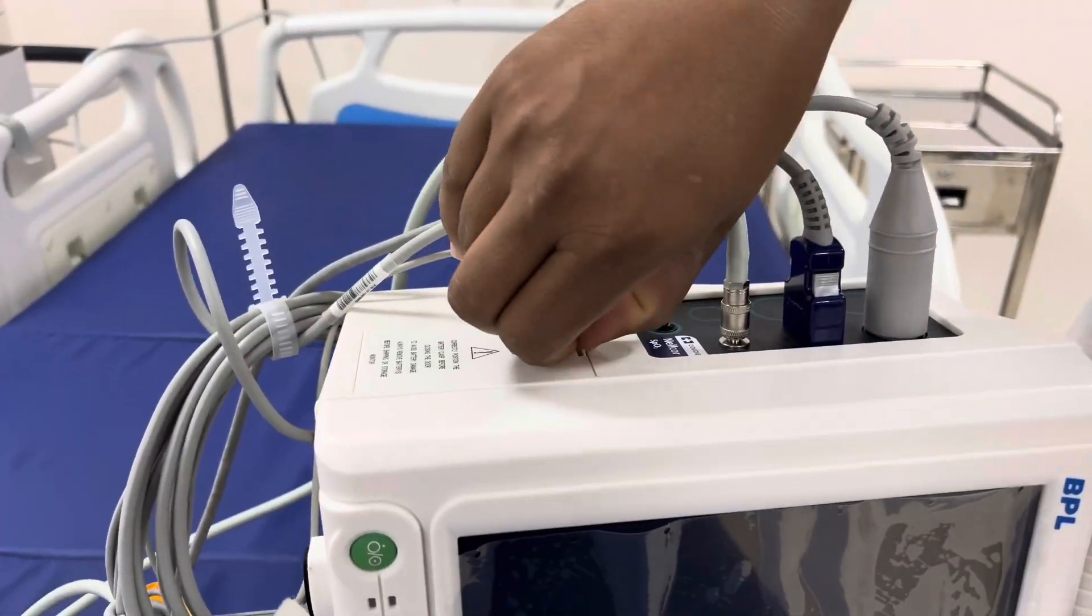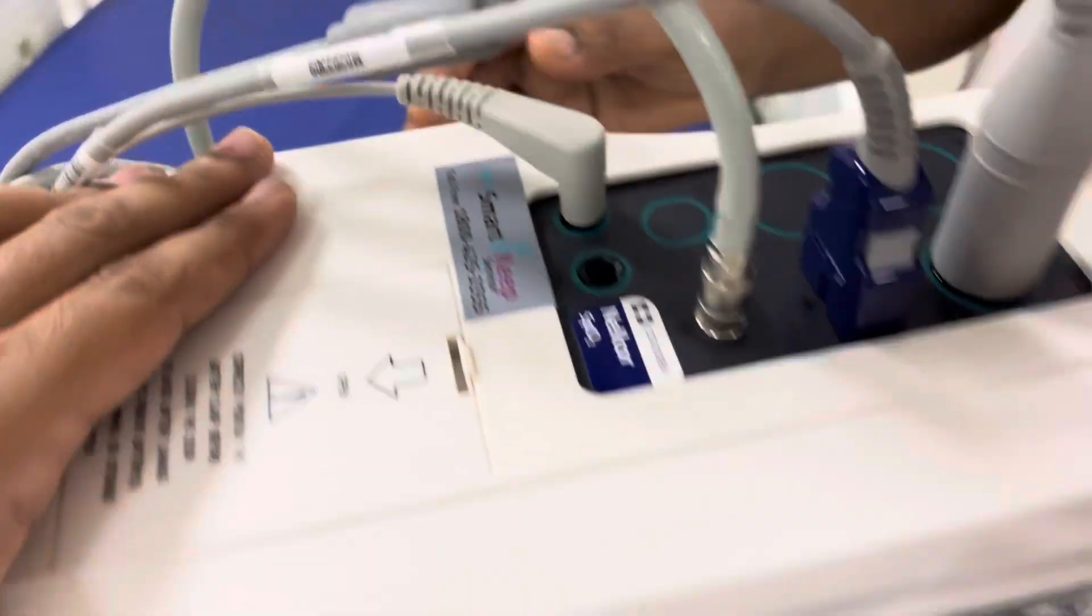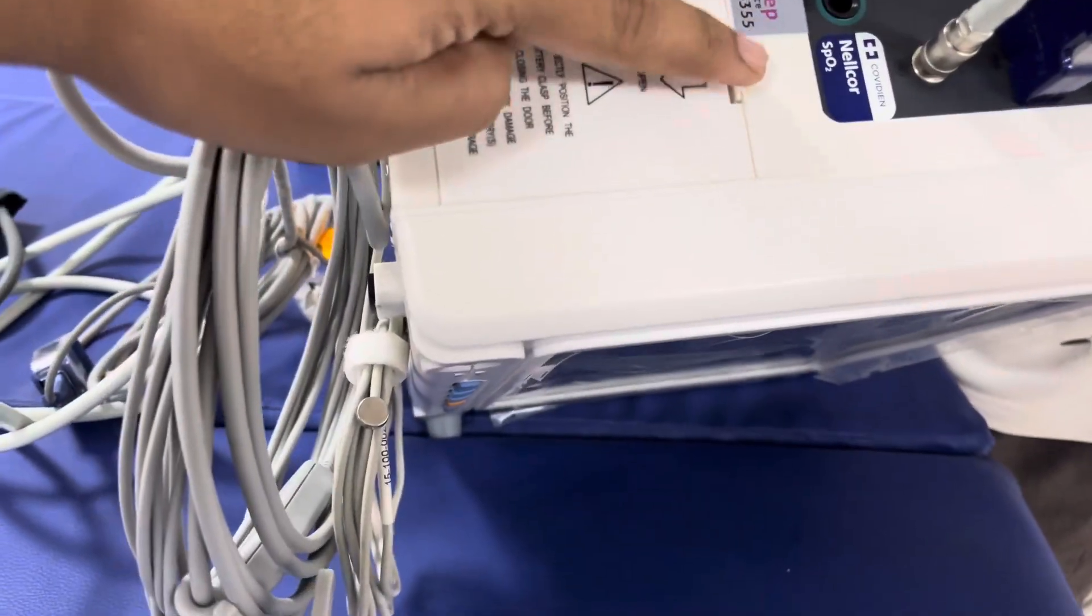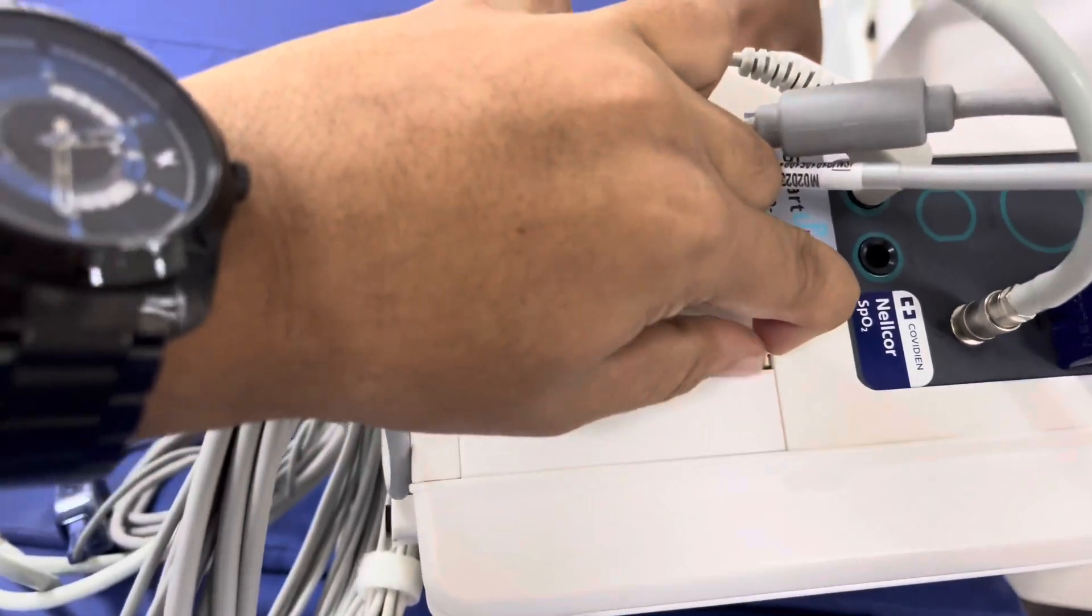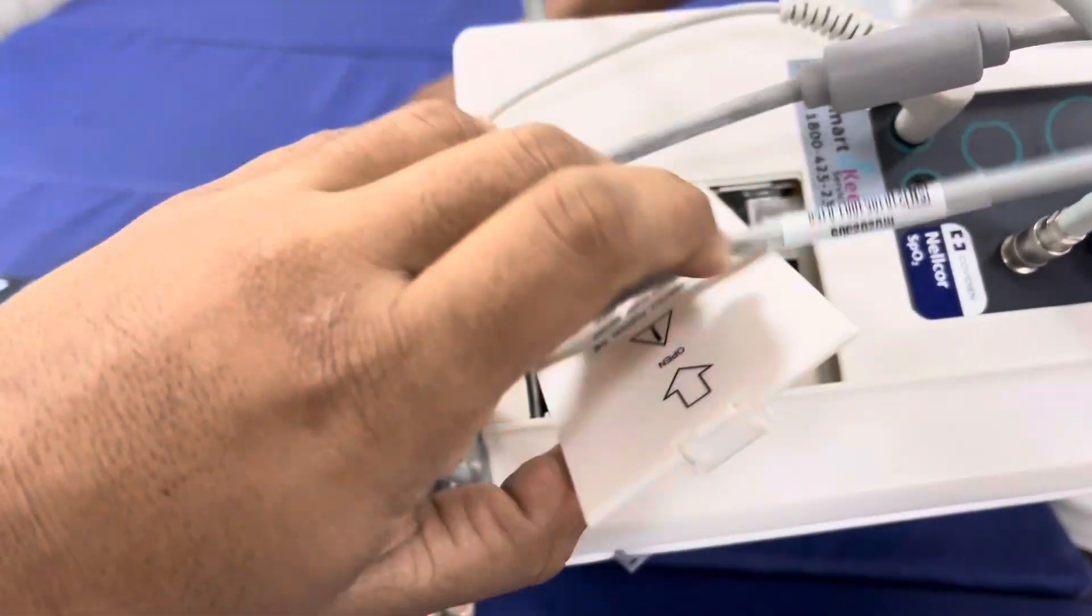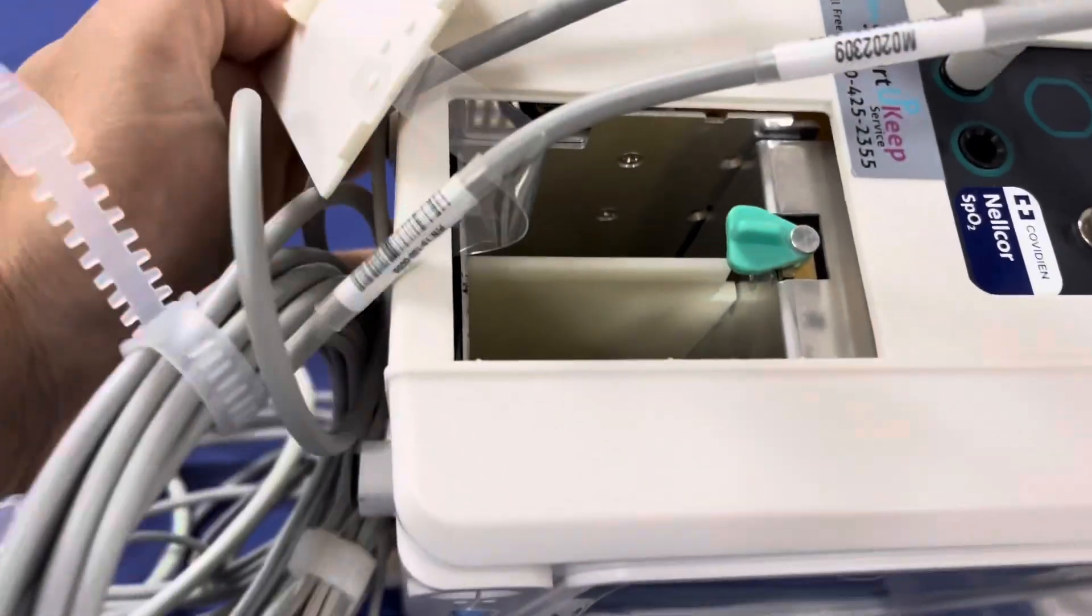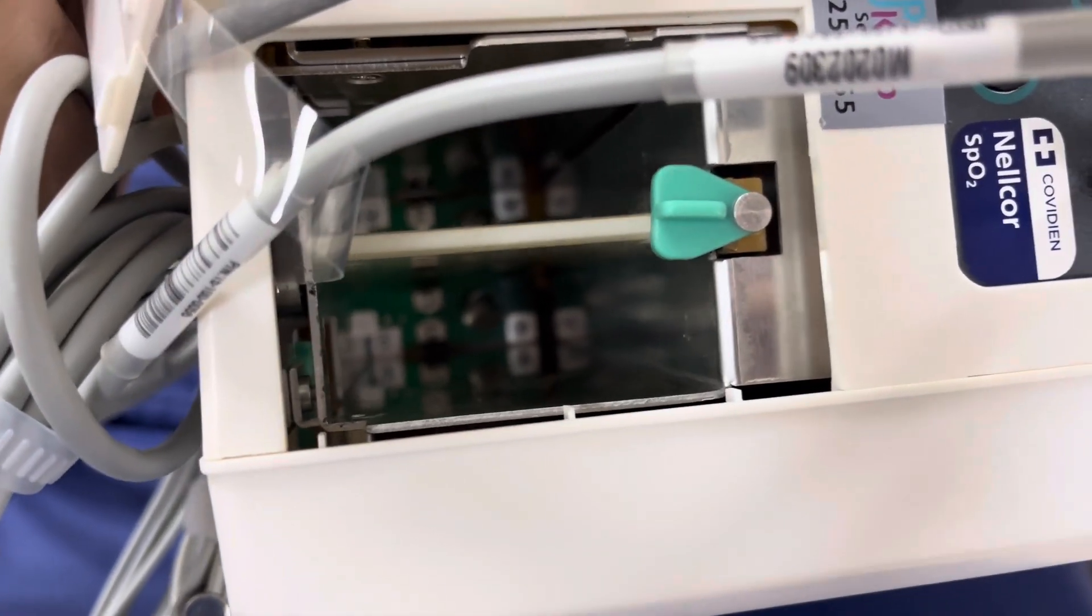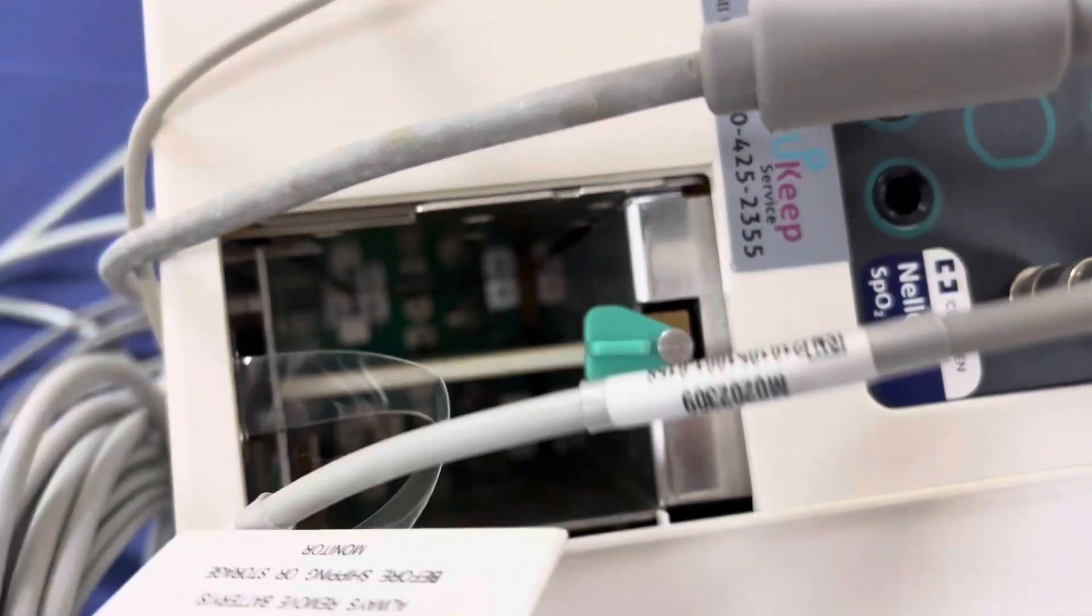Turn the monitor and you can see one arrow. Press this one down. Open this and see the port.